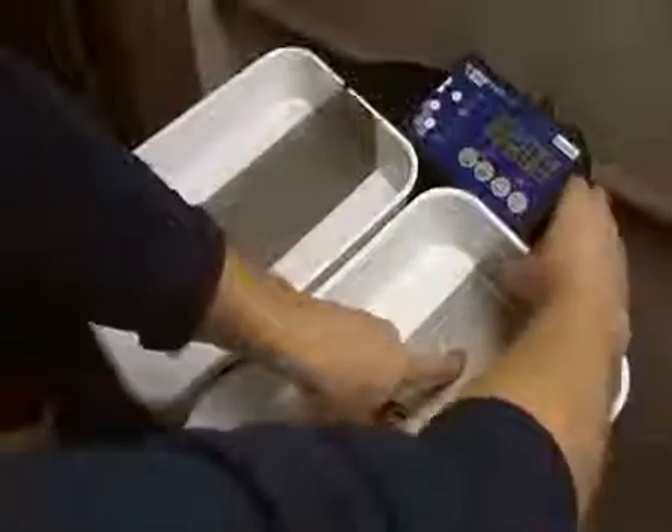What you want to do is literally just plug them in — everything's colour-coded. It's really quite simple; everything's colour-coded on the back of the machine as well.